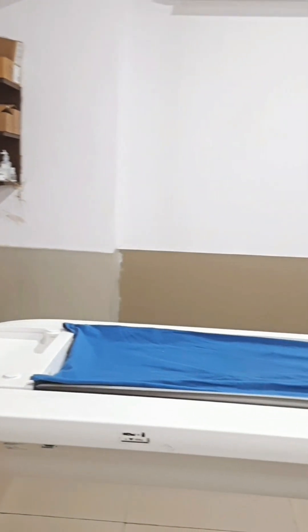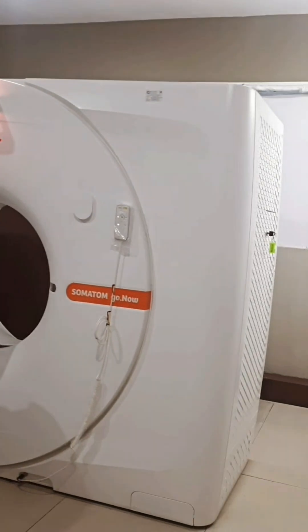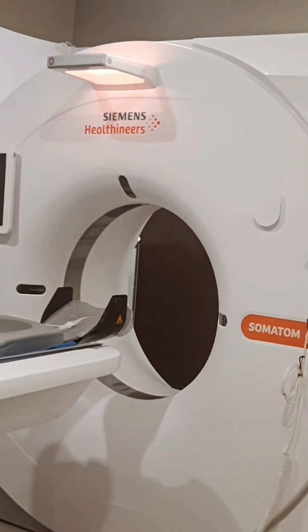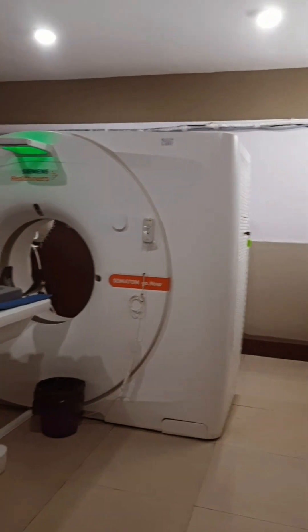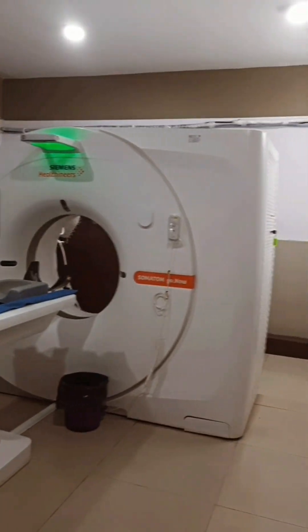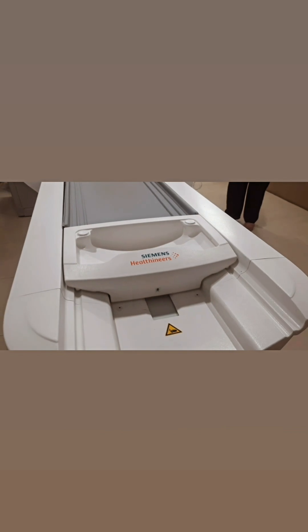Now let's move to the gantry room where the actual scanning happens. Welcome to the CT gantry room. This is where the patient lays down and the scanning takes place. The most important part of the CT machine here is the gantry, the large circular structure you see. Inside the gantry there is an X-ray tube that rotates rapidly around the patient and detectors that capture the images.